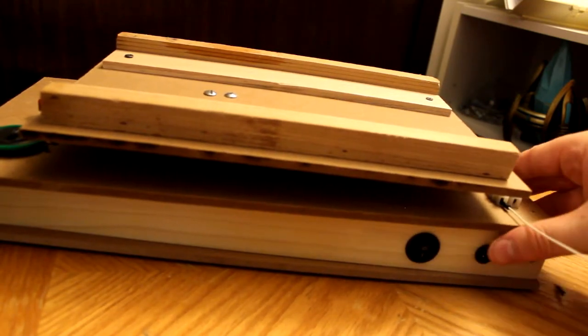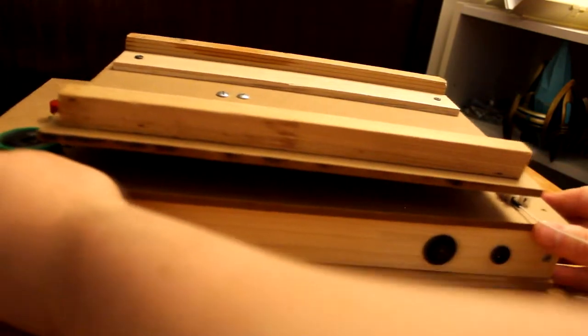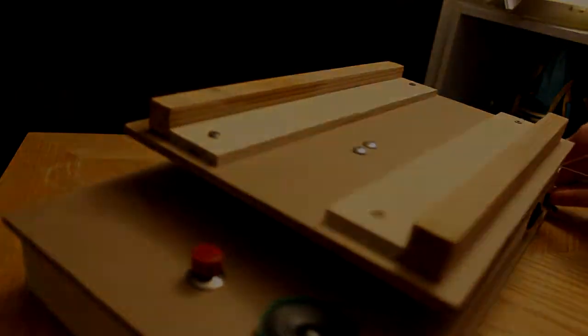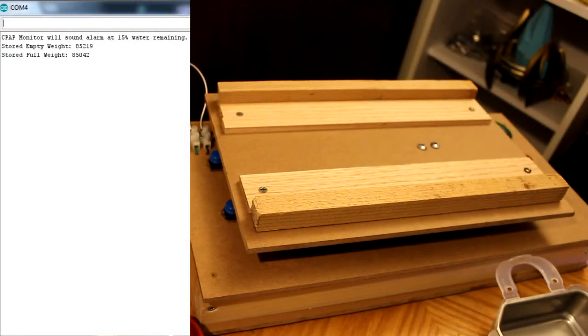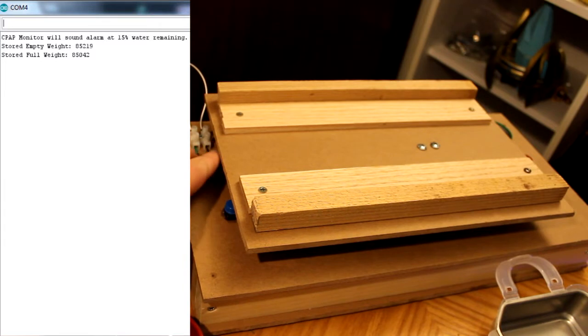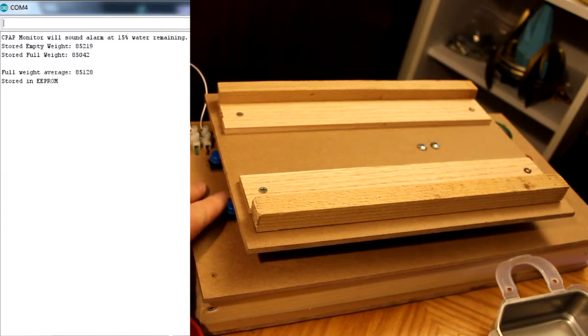In total, the value being compared to the alarm weight is the result of 50 separate measurements. Two calibration buttons exist to store min-max weights in EEPROM, meaning they will be stored even once power is removed.